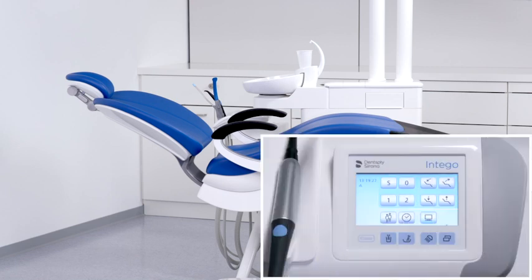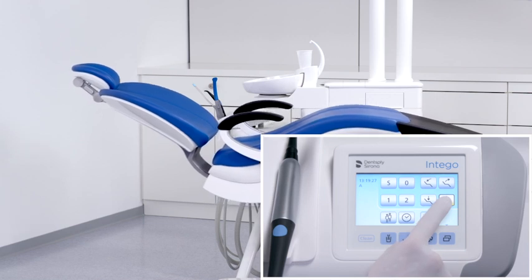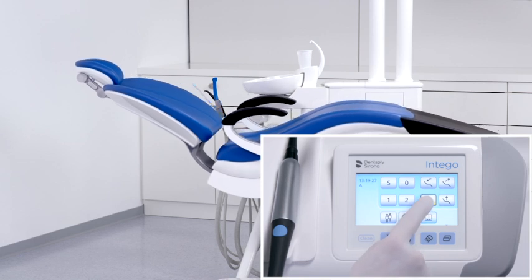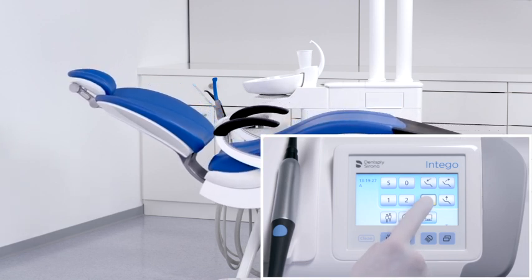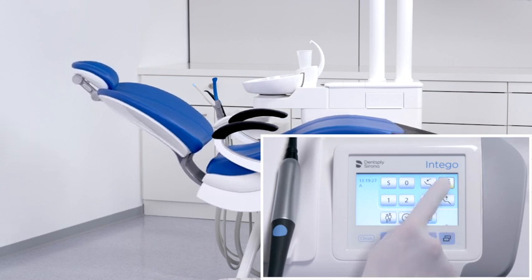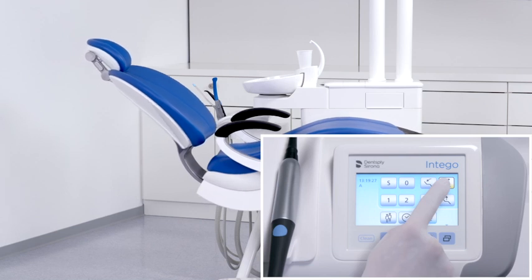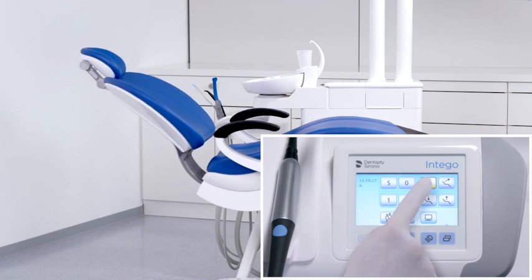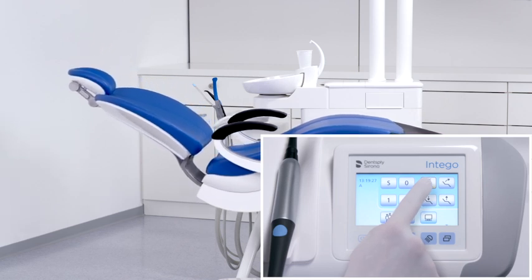The manual chair adjustment keys allow you to move the treatment center to the optimal height by holding the up or down button. The backrest tilt button moves the seat and backrest without any compression or stretching effects for the patient. Manual adjustments can be saved on any desired chair program by pressing and holding the respective button.